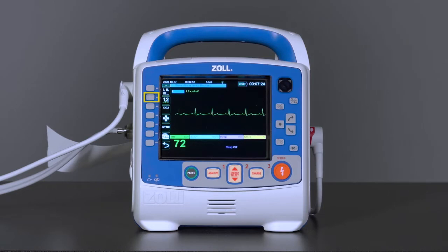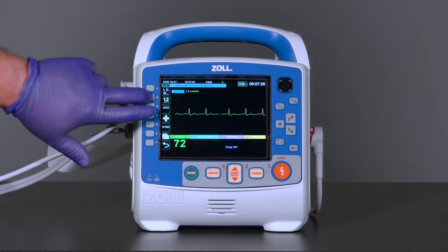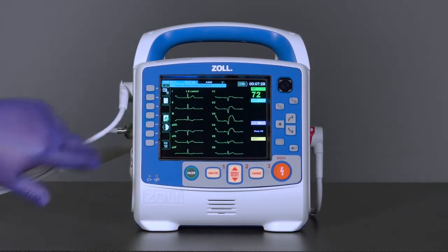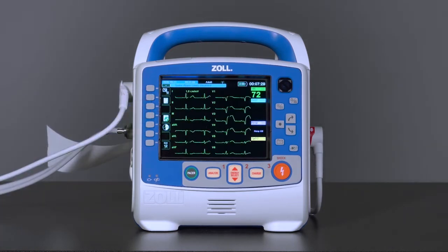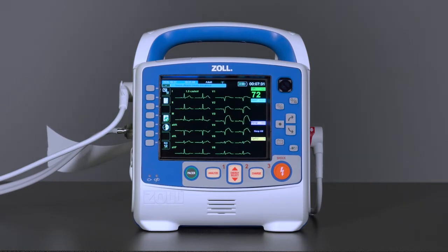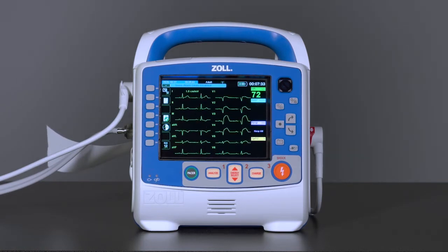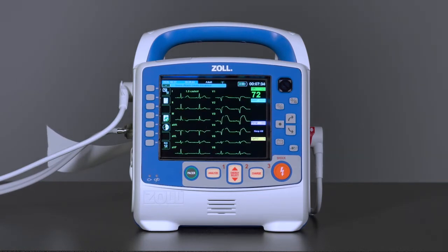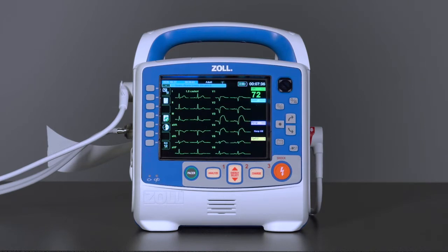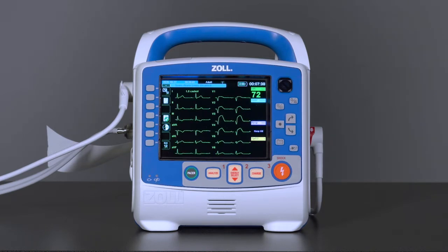Press the 12-lead ECG key to open the 12-lead ECG screen. This provides a diagnostic filter view of all 12 leads on the screen to check the quality of the tracings before the 12-lead ECG is acquired.